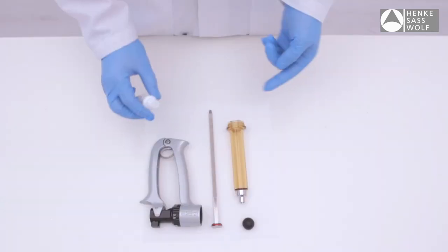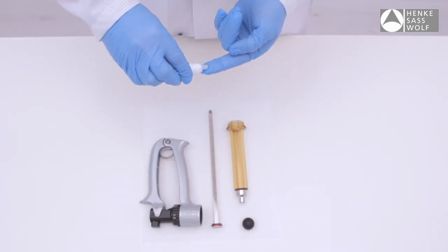Before assembling the syringe, lubricate piston and glass barrel with 100% Vaseline.